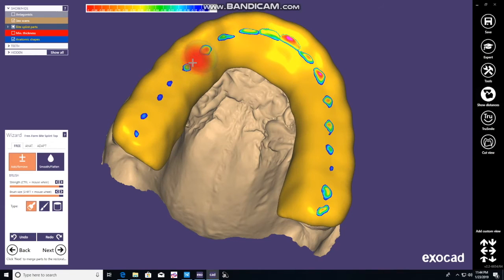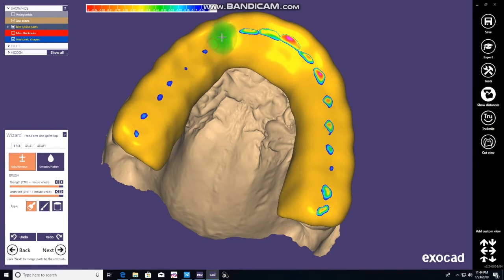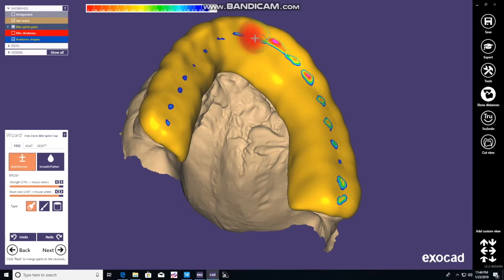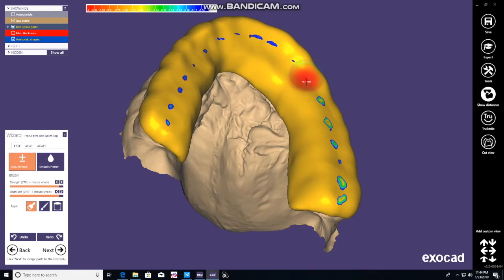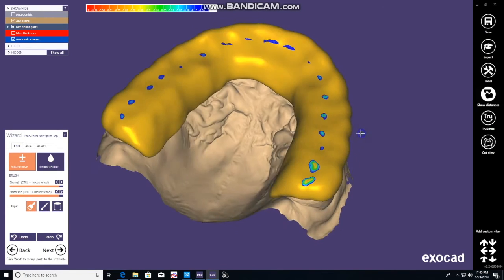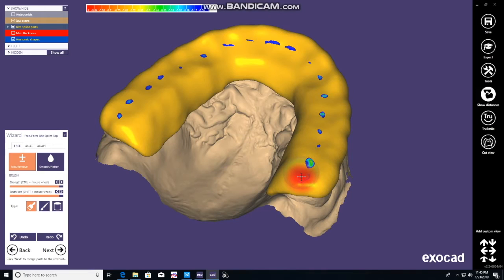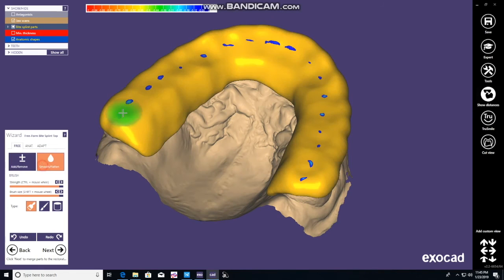The goal is to have every tooth in the mandible touch the night guard. That way it helps stabilize their position, and we want to minimize tooth movement which will create interferences and problems. If you took too much away, just add it back. We're getting closer to being complete. Continue to remove a little bit by little bit — just little clicks, we're not holding it down. We're pretty good there. Might go back and smooth that again. Just make sure you don't leave any divots in it.